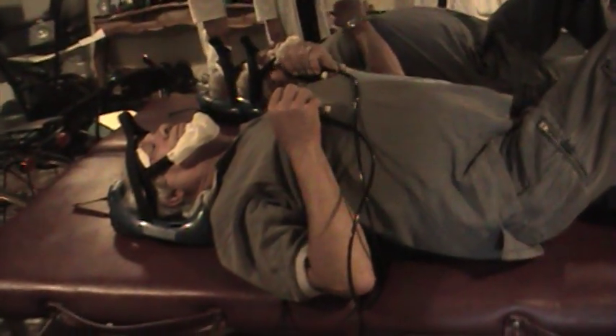What you're going to do is first pump up the back pieces. There are two here — pump them up to a comfort level for yourself. Pump that up to where it feels comfortable. And then you're going to let those go.